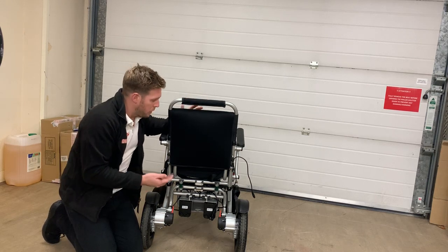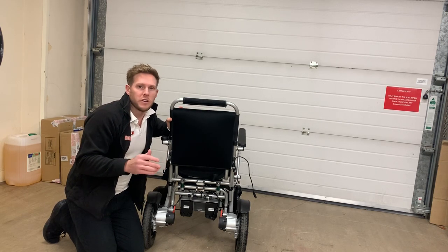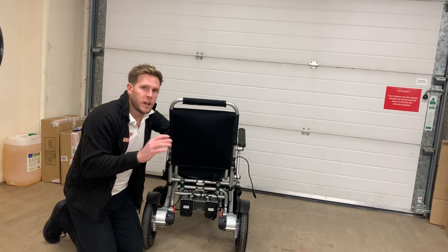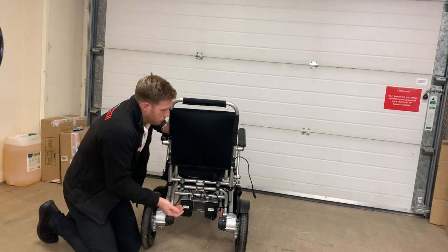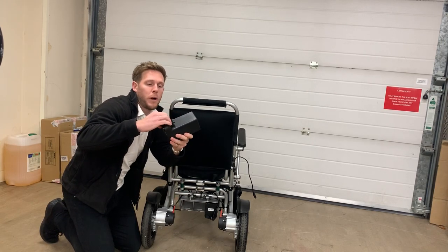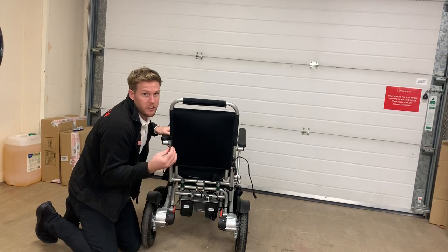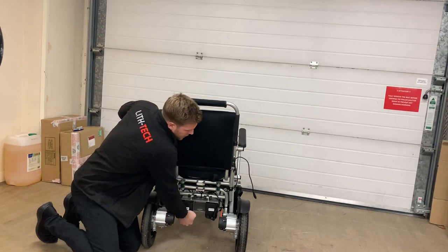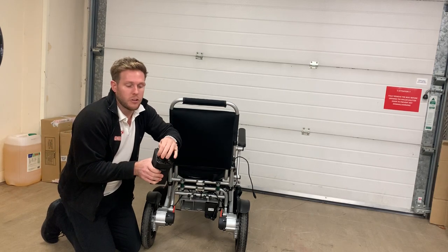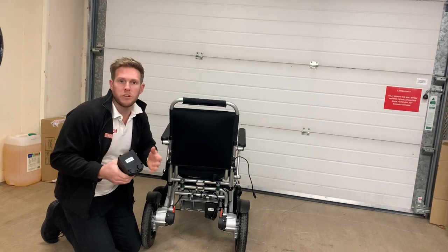The best thing to do is contact your airline before you fly. All these companies claiming their chairs have 12AH or 28AH batteries and they're airline safe — it's complete nonsense. Under the new laws which came in last year, 6AH batteries are the only battery safe on every airline in the whole world. To remove the battery it's a simple racking system — push it in until you hear the click. These batteries weigh only 0.5–1.5kg, and you can also charge directly into the batteries themselves.